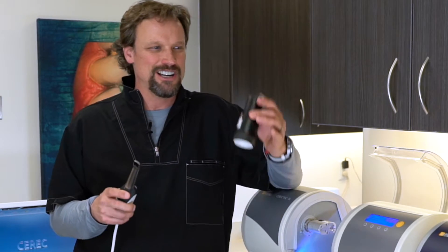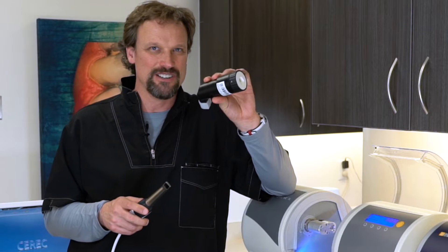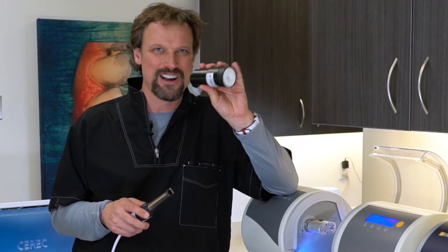If you want to calibrate your Omnicam, you need two things. You need an Omnicam, and you need the calibration sleeve. Go find this in the back of the drawer. It's critical — you've got to go find it.